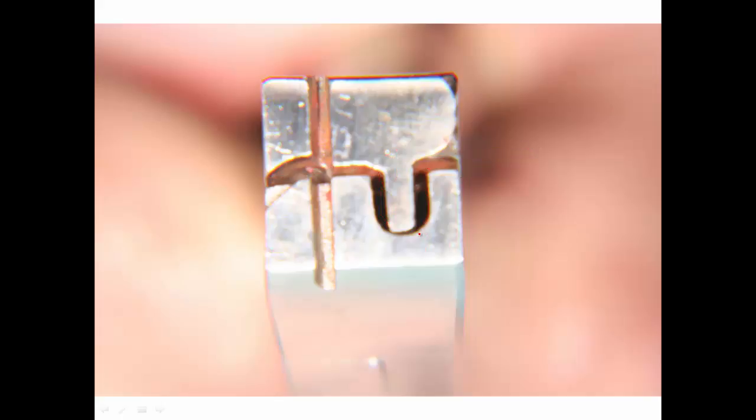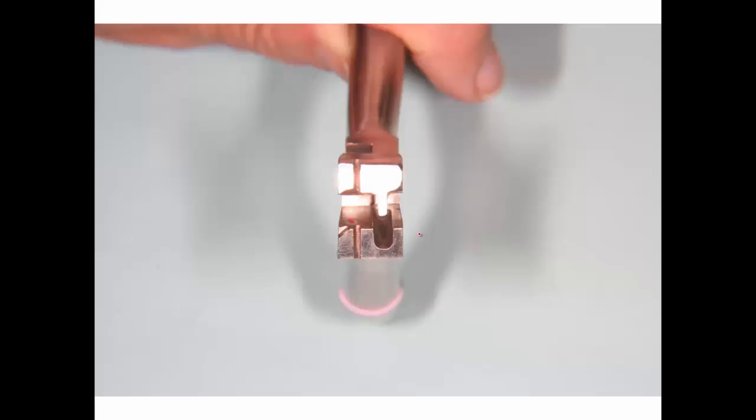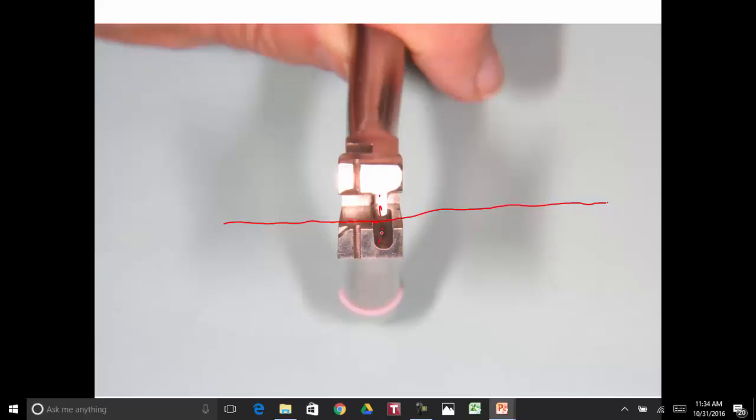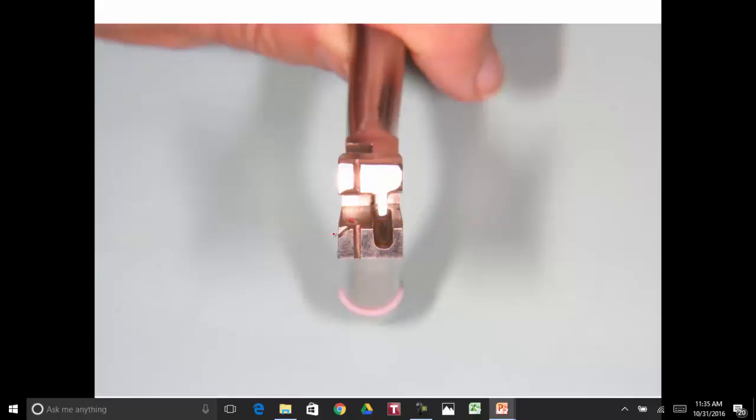Let me go into the next part. The plier should look something like that from the side. When you open it up, that's where we lay the wire in this portion, and then when I close this down, it'll bend the archwire inside like this, come out the other side, and this portion of it allows us to put a slope to the omega. If you try to bend these by hand, you can do them, but they're a lot more difficult.